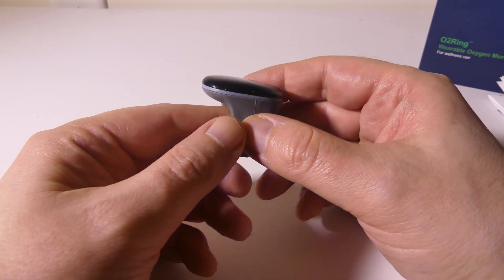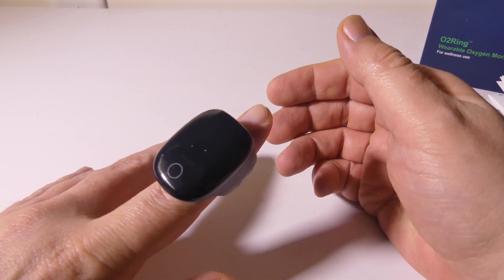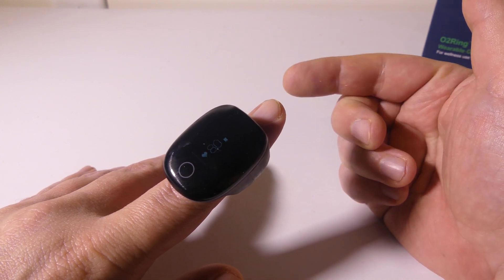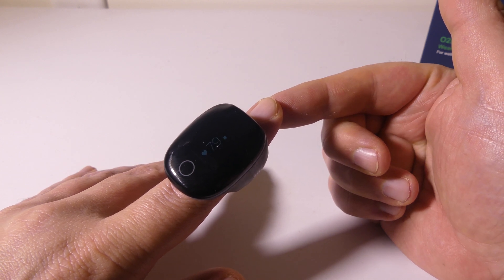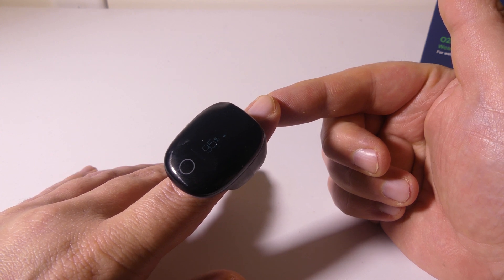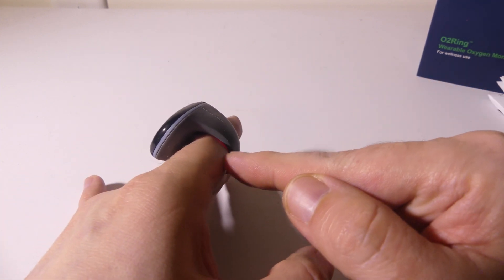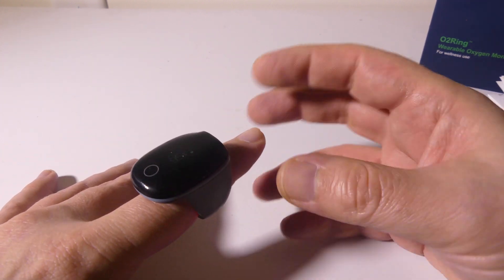To activate it, you can either touch the sensor on the top — that little circle — and you'll see a clock, then just stick it on your finger. It'll automatically start recording your O2 sats and your heart rate, blinking back and forth between both. I'm sitting at about 79 beats per minute and about 95% on my O2 sats at the moment, which is very good. This is on the lowest brightness setting, by the way, and it's super comfortable to wear.